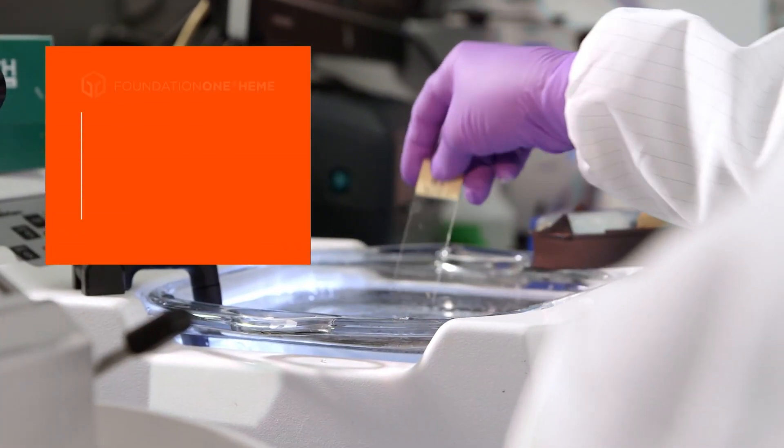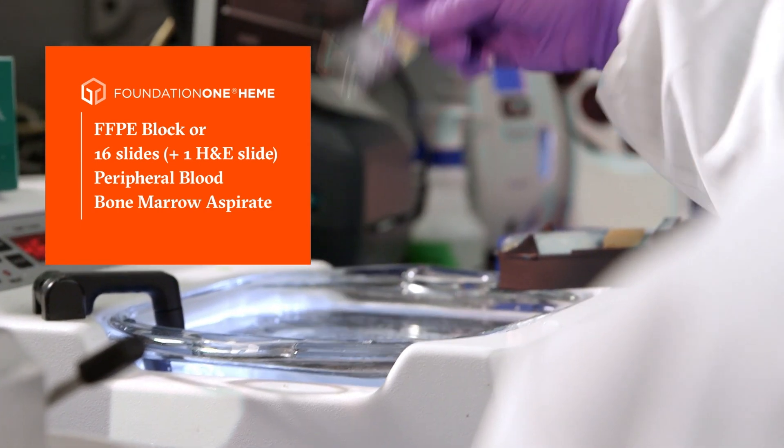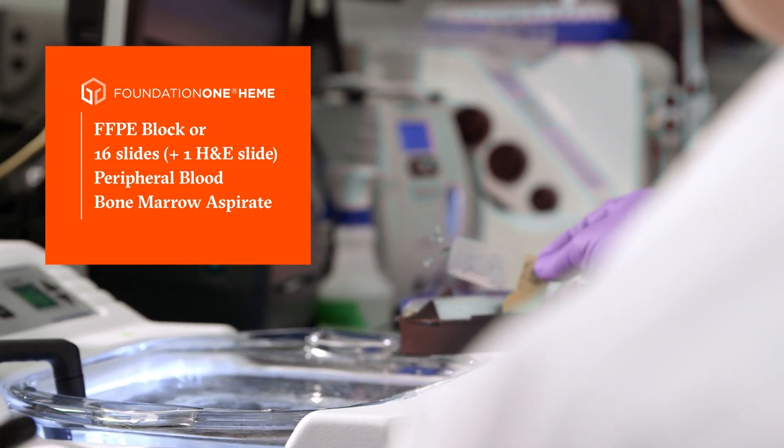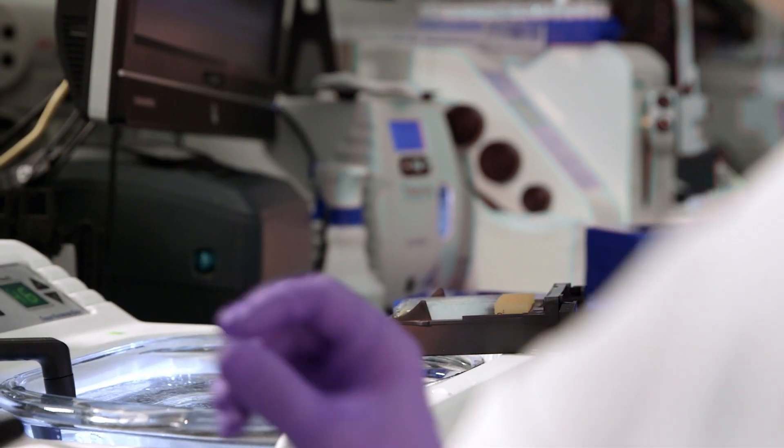For hematologic malignancy samples, fresh peripheral blood samples and bone marrow aspirates, smears are prepared and stained.